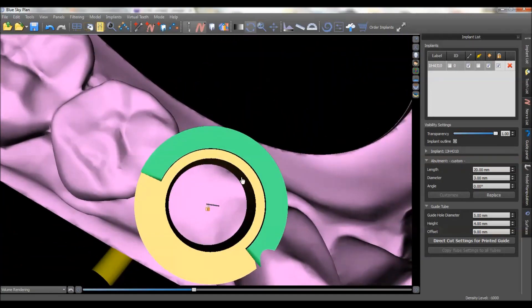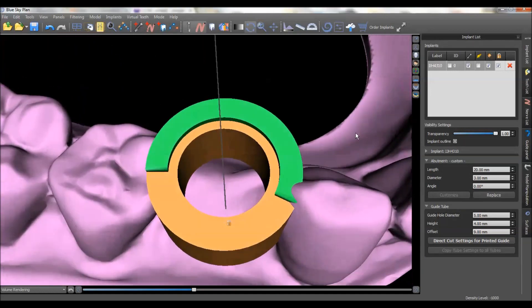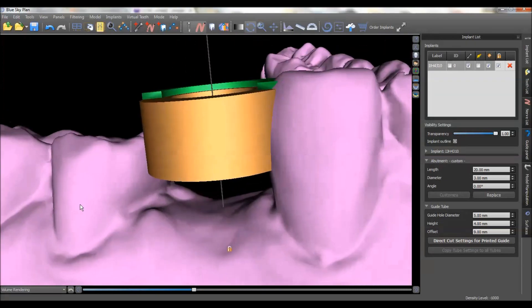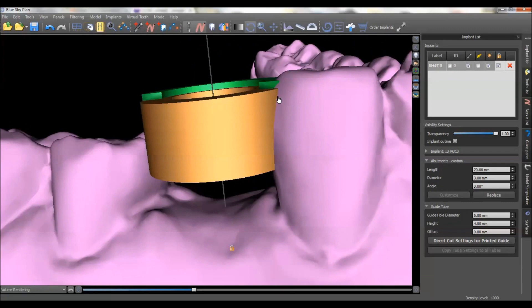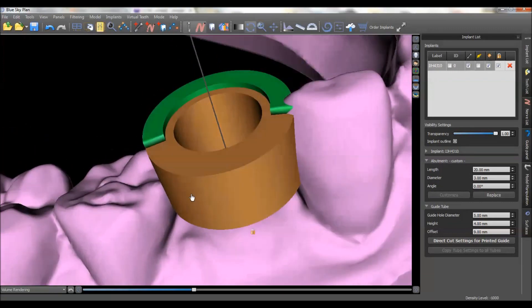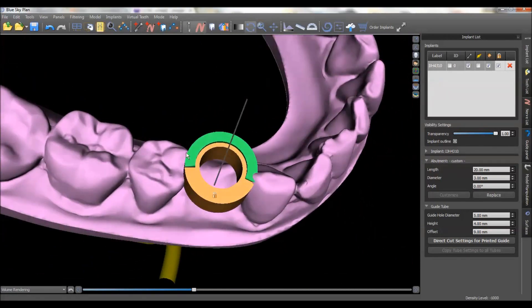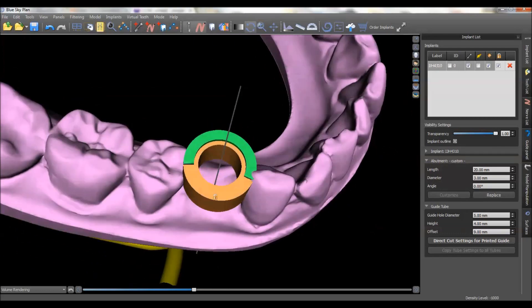I notice that the teeth don't stick all the way into the inside. This ring right here is actually what will be incorporated into the final 3D printed guide. So as long as nothing is sticking through here, we'll still be able to put the metal guide tube in. The way I approach this is that once the guide has been 3D printed and I've got that stone model, I'll just take a burr to the inside right here until it fully seats. That's not going to affect the fit of the guide — you just need to take away a little bit of that 3D printed material until the guide will seat.